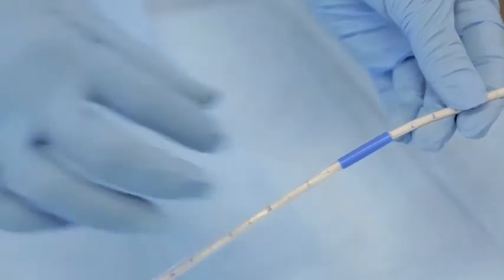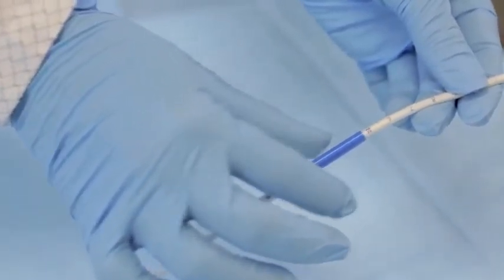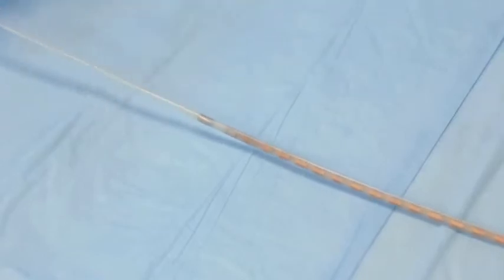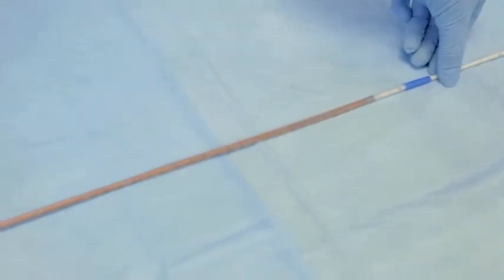Loosen the blue cuff part of the sheath by moving it down a bit and slowly work the ManoShield down and off the catheter by gently pulling the distal tip of the sheath. Do not bunch it up. Work it off gently so as not to cause a tear.